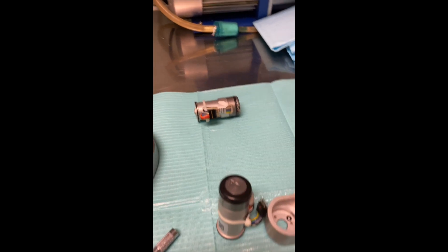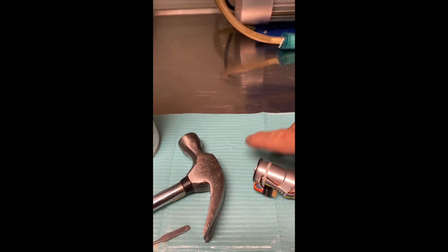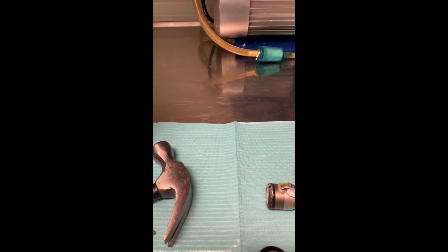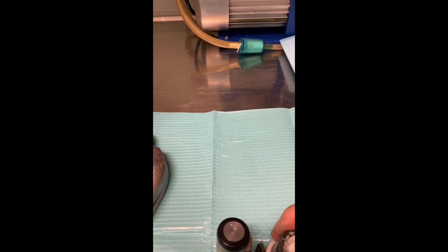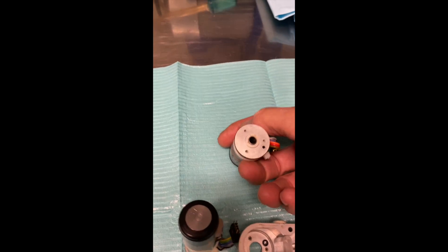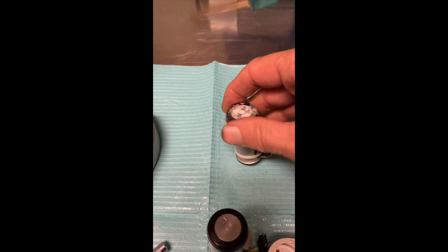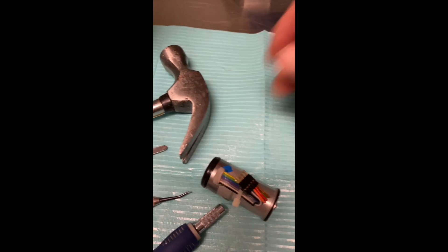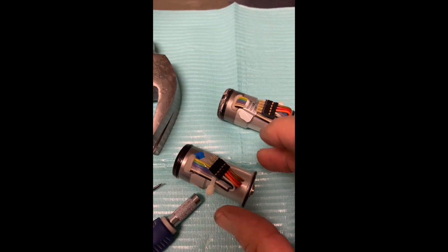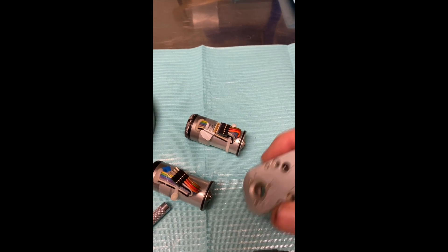Here's my workbench. My old spindle motor's here, and I've taken that out of the unit. One thing you want to keep is the orientation of this plug, because this is going to fit down into here. If you look down in here, there's a little silicone washer, and this extra hole right here has to line up with that. This has to go back into place with the red wires, gray wires, and brown wires in the same orientation. We see the same thing here as we lay these down, and that's going to fit down into here, and then I'm going to screw it back down.